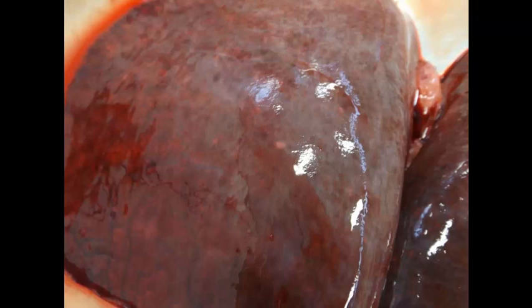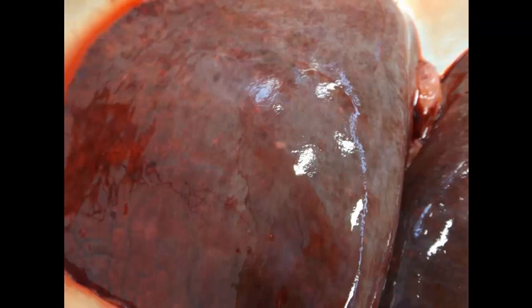This is slide number seven, and it's tissue from a foal. Can you give me a morphologic diagnosis and a cause?